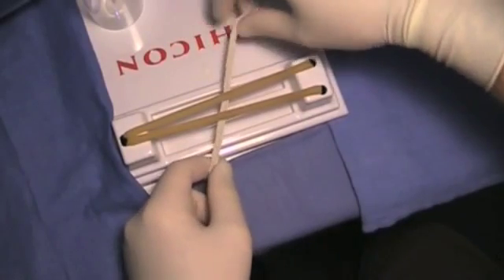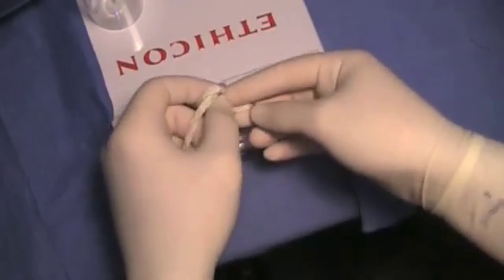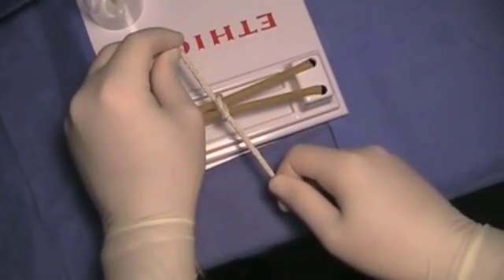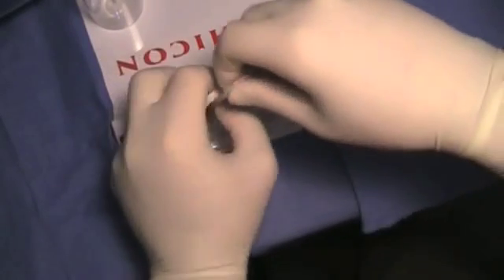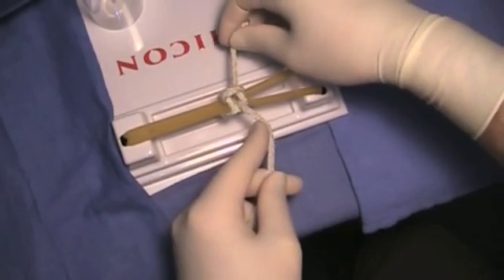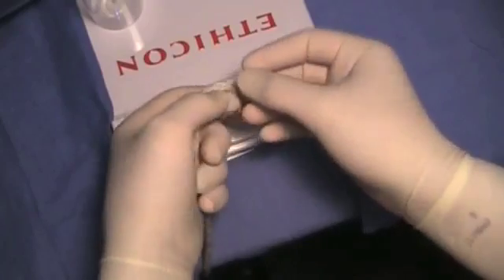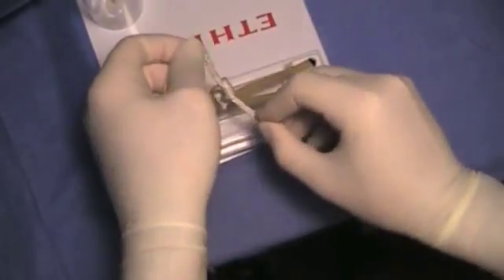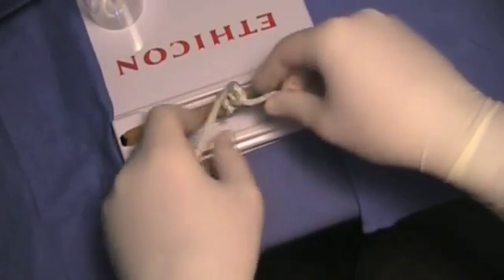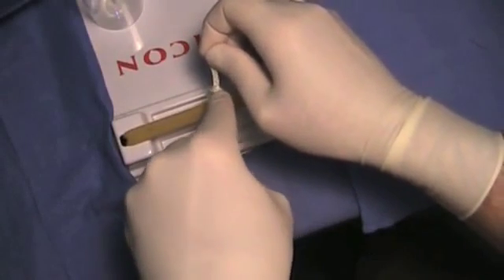To visualize some standard errors to avoid: first, the air knot is caused by a lack of securing or pushing down your knot. If you pull without using your index finger to secure the knot and your second throw comes through without tightening it down, you will get a gap between your knot. With that gap in place, if you then throw your next knot, you will lock in that air and that will be dangerous. Make sure that when you tie your knot, you use your index finger to cinch it down tight.